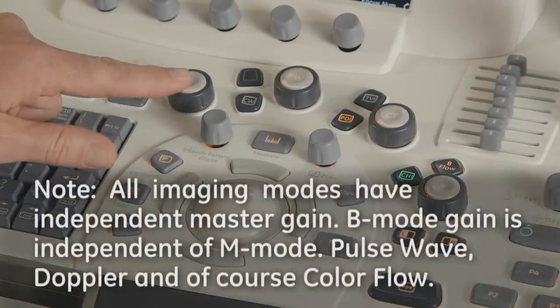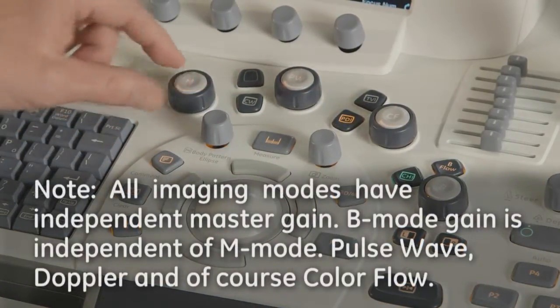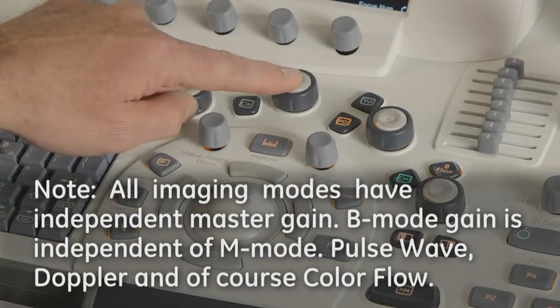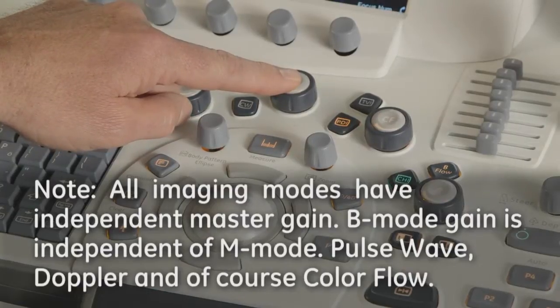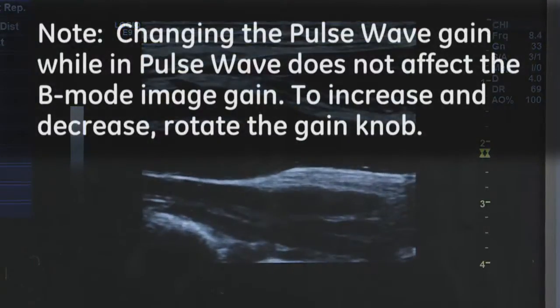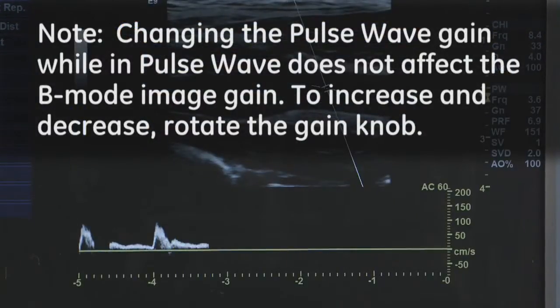Note, all imaging modes have an independent master gain. B-mode gain is independent of M-mode, pulse wave Doppler, and, of course, color Doppler. Changing the pulse wave gain while in pulse does not affect the B-mode image gain. To increase and decrease, simply rotate the gain knobs.